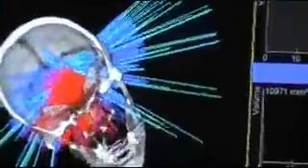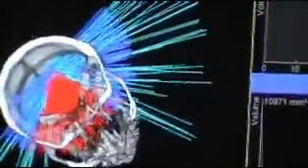For example, beams that go directly through the eyes we rule out because we don't want to do retinal damage. But you can see that we have all these beams. Each one does a little bit of damage as it goes through, but they're all converging on this lesion that's in the back of the head.